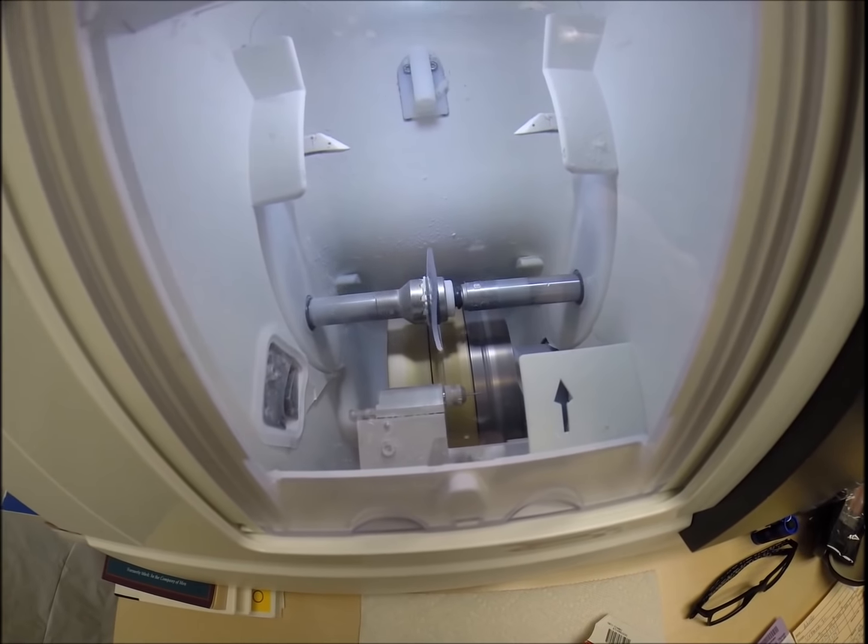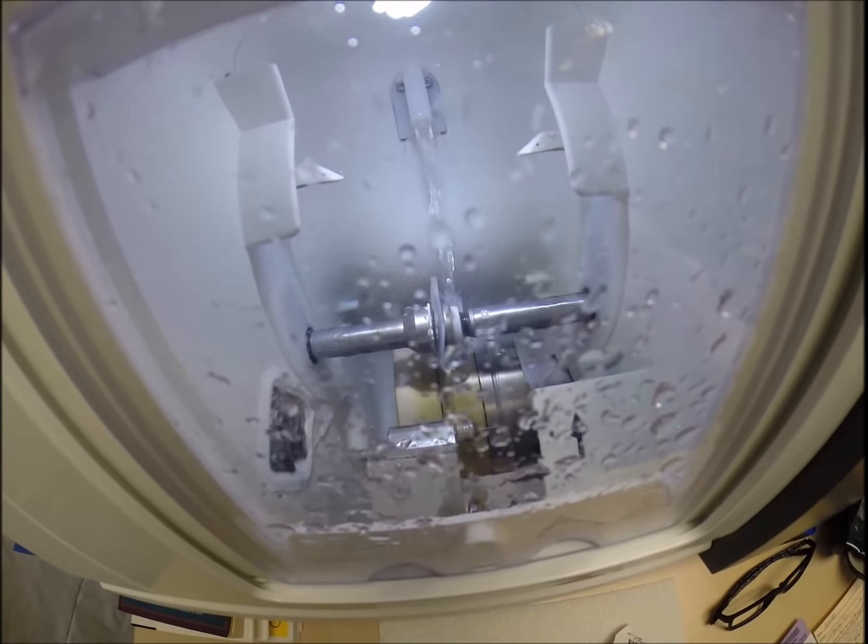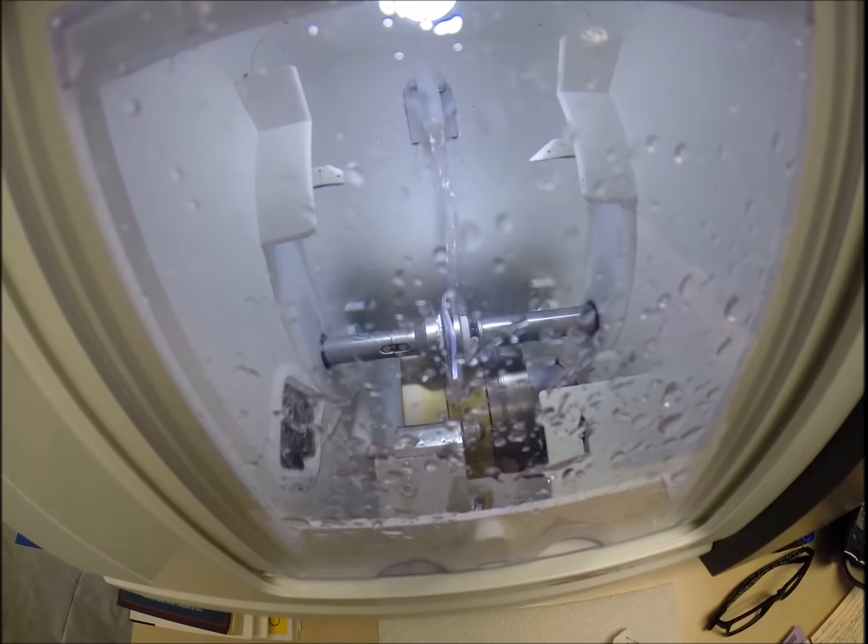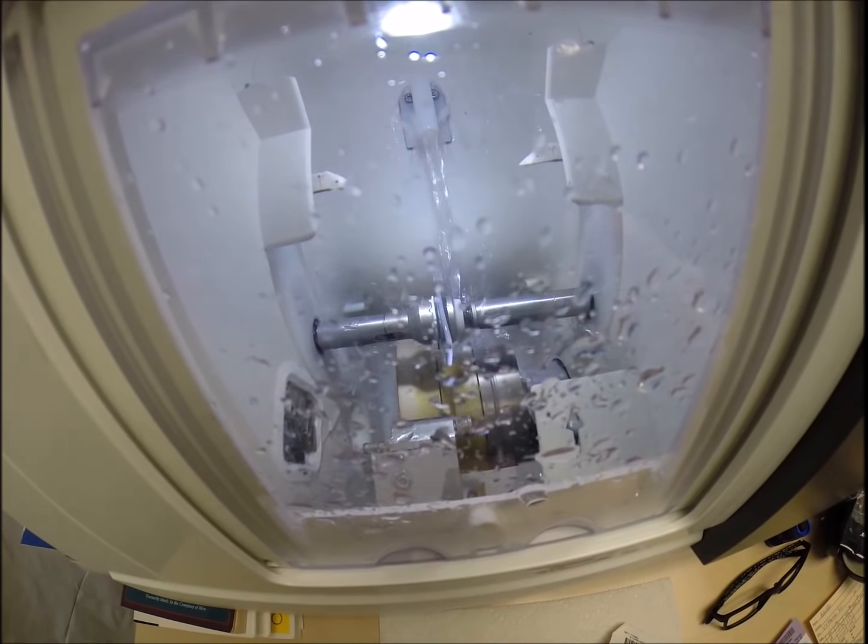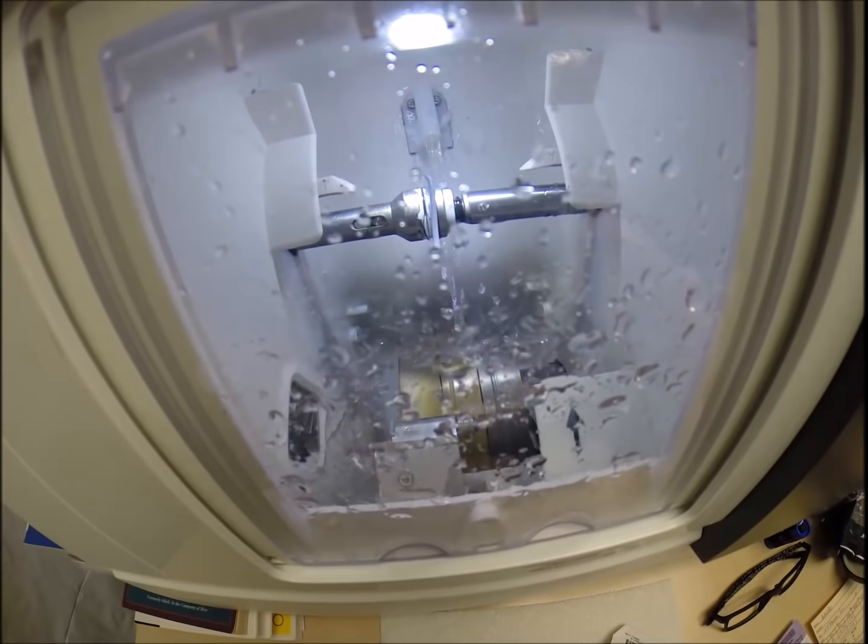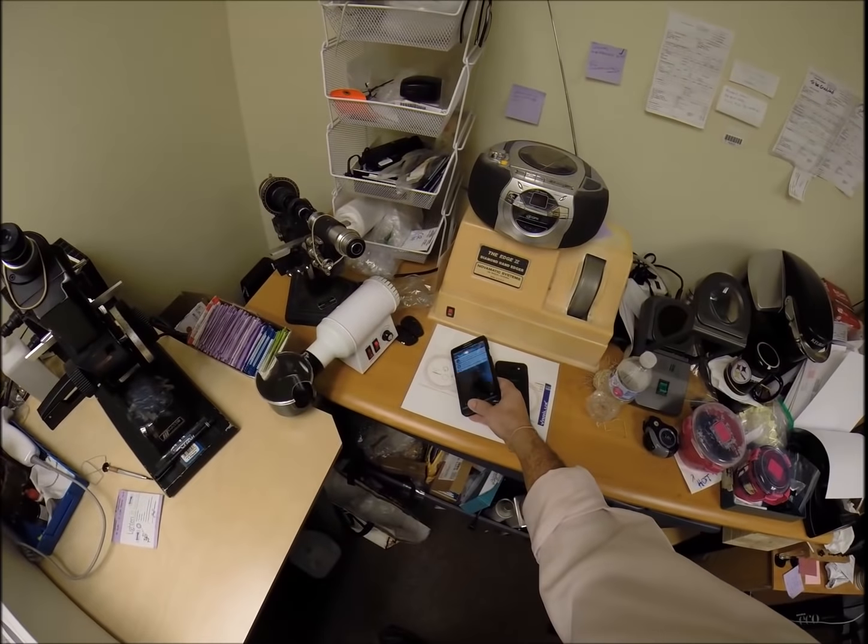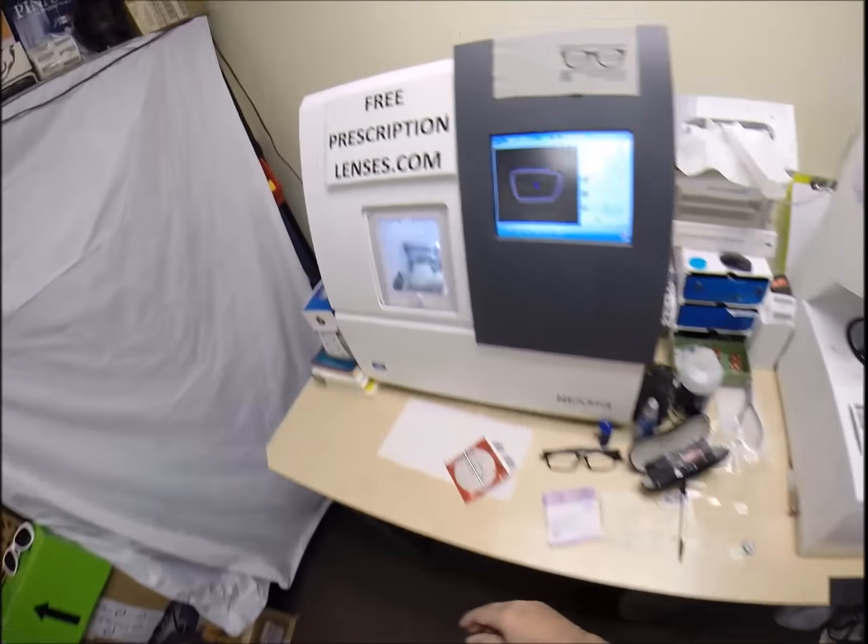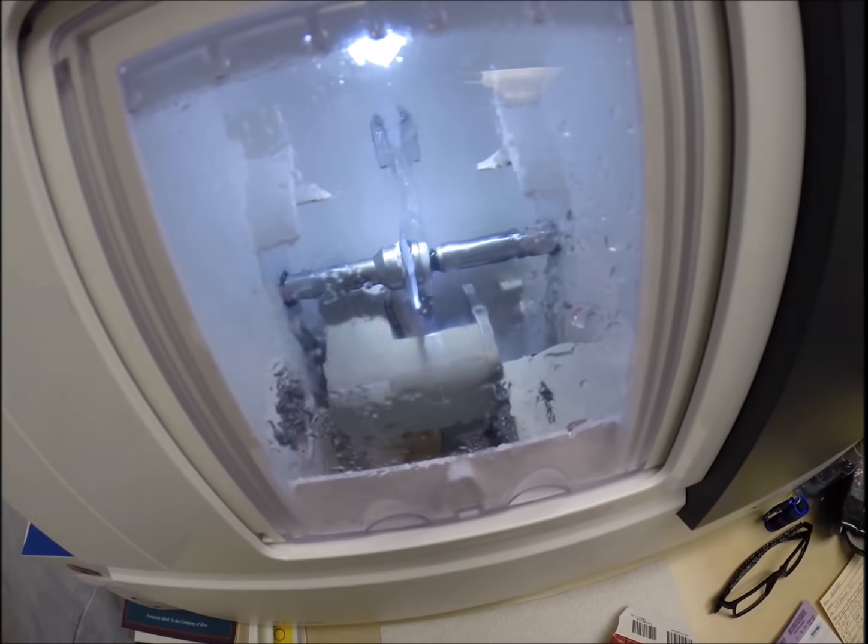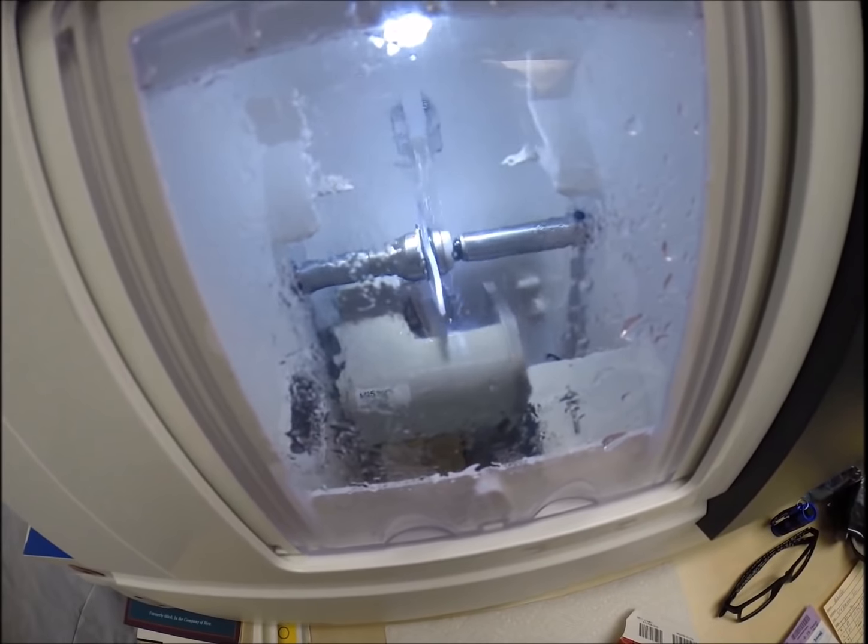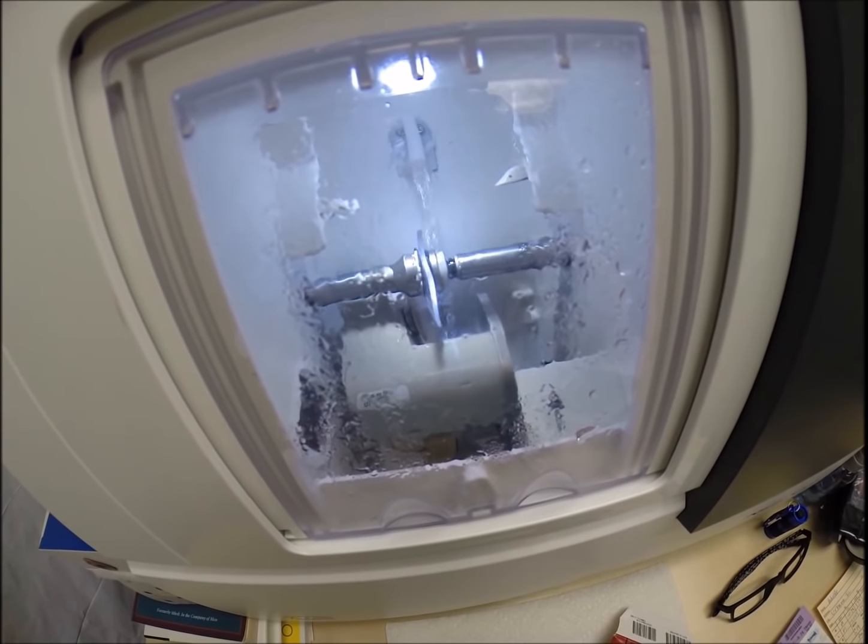But it also has the cosmetic quality that if someone takes a picture of you with a flash, you won't see the flash lit up in the lens. So water has begun spraying onto the lens, which tells me it's in the last 20 seconds of the cutting cycle. Now, the third feature that I like about the anti-glare is that, hang on, let me check something. Okay, we're good. We've got a lot of people contact me today. I shouldn't say this out loud, but the Oakley sales rep, we're crunching some numbers, and we're going to see if we can't put things together.